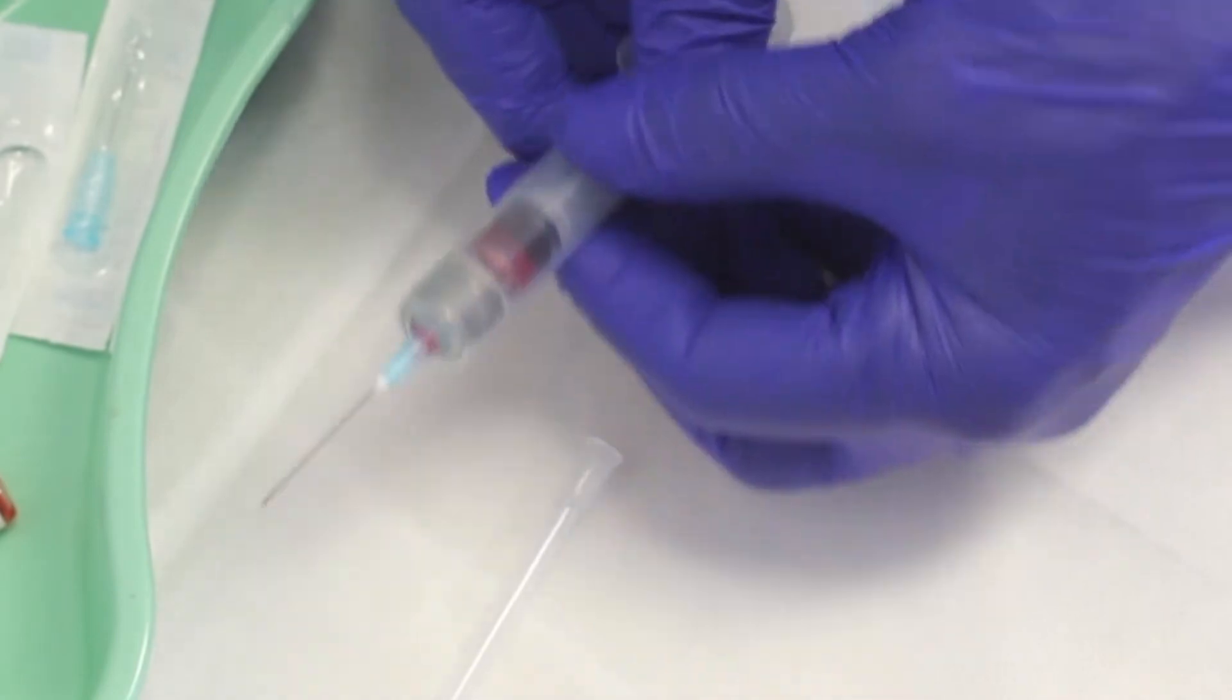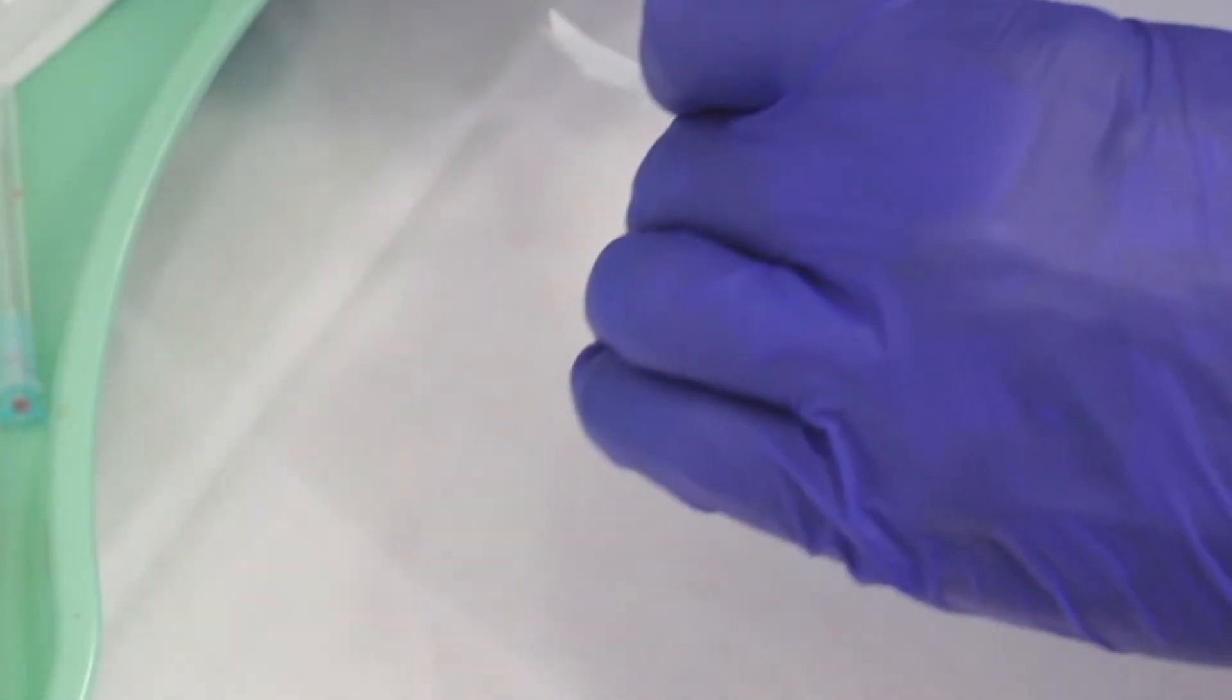Once the drug has been put into the syringe, the operator has a choice of either using the same needle or of changing needles.